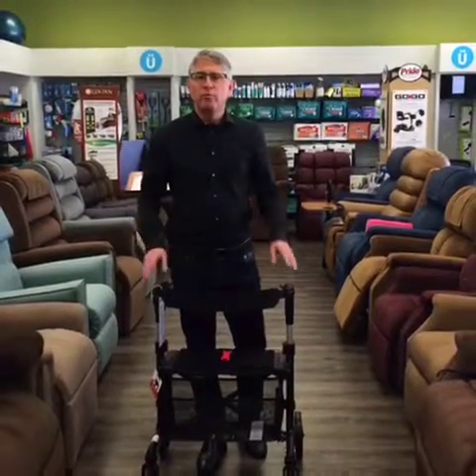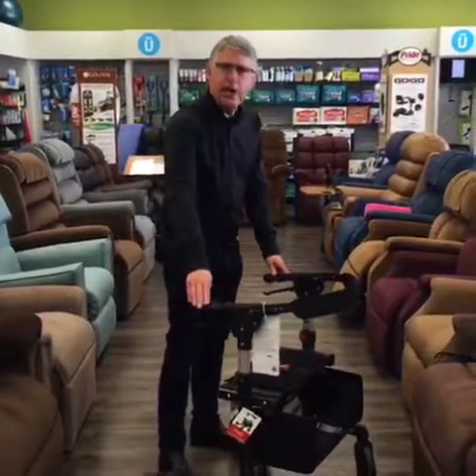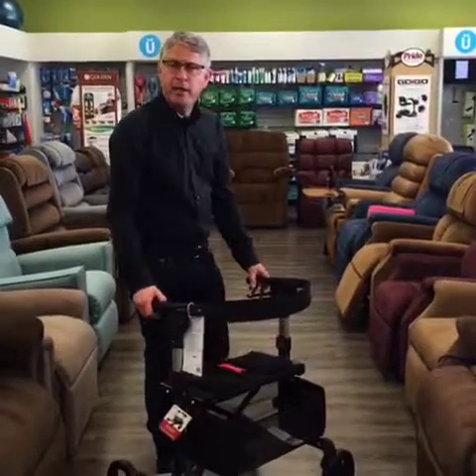Hi there. Are you looking for a really great rollator that has lots of flexibility? Then look no further than our Escape Rollator. This is a wonderful rollator — it looks like any other rollator.